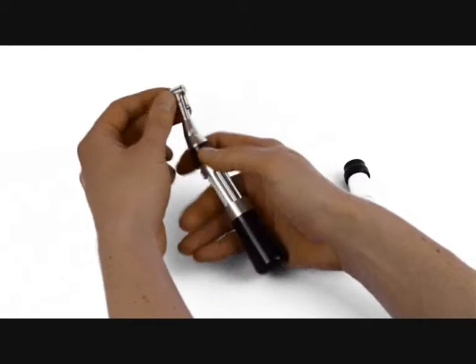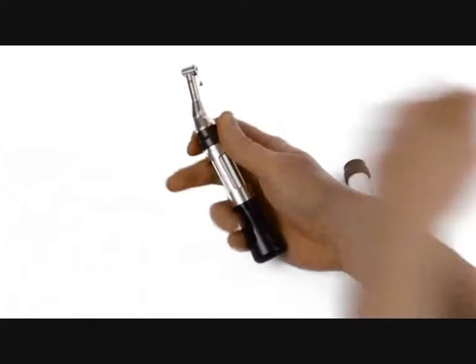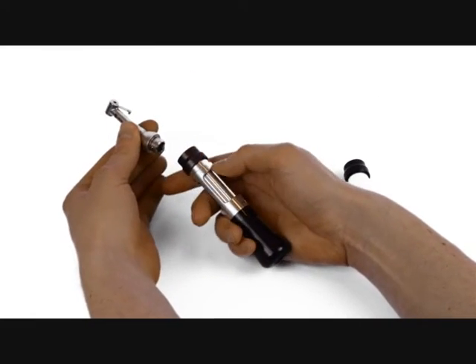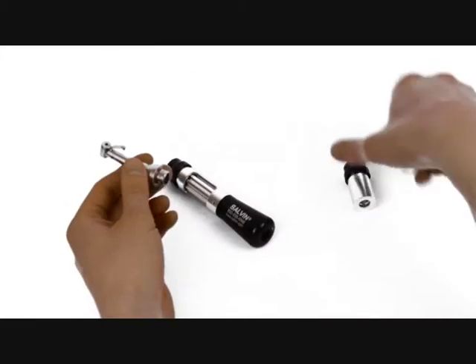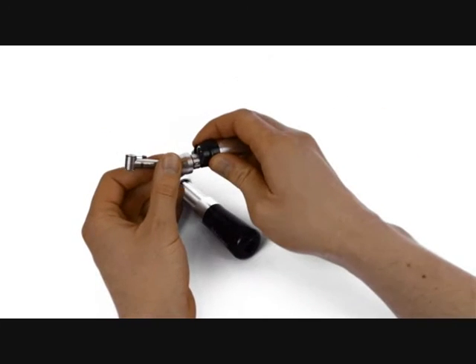After you're finished, take out the driver and then detach the head from the handpiece like so. Take the head of the handpiece and attach this cylinder here.